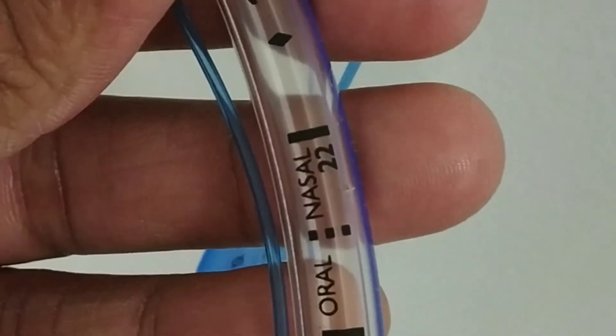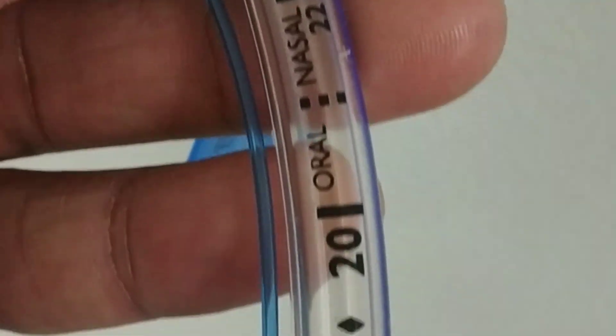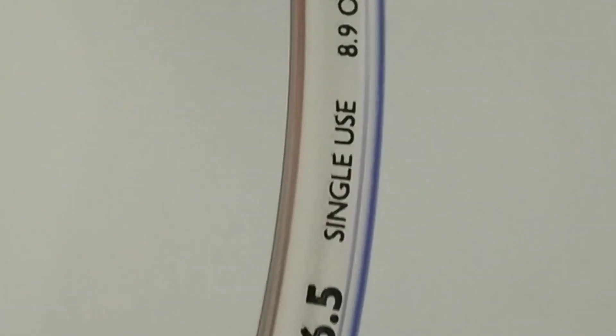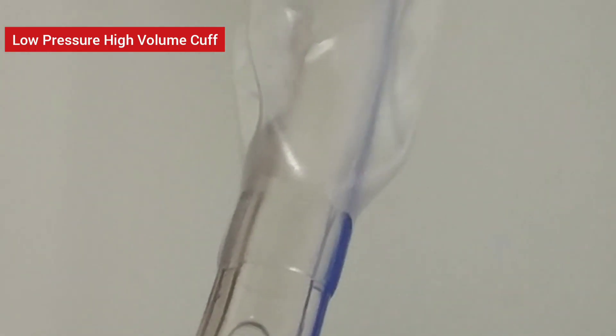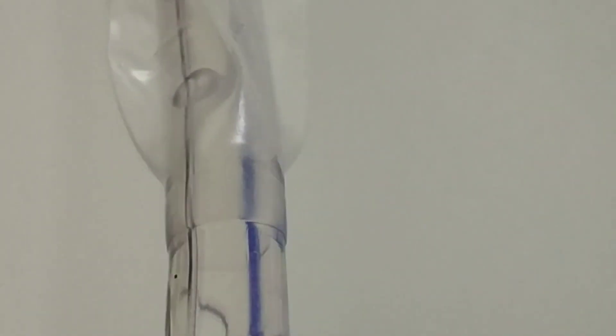Here we can see from the pilot bulb how the pressure goes to the cuff. You can see the tube merges and almost becomes transparent, then the pressure goes to the cuff. The cuffs which are used are low pressure, high volume cuffs which have less chance of tracheal necrosis and ischemia.